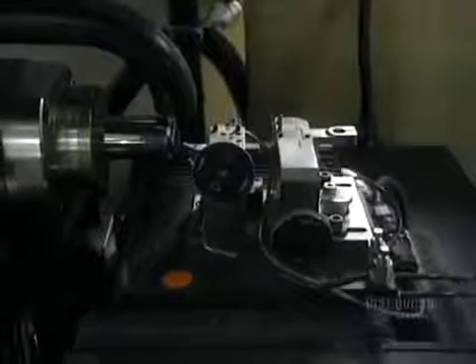They begin by shaping the inner curvature of the lens. This digital lathe, rotating at 6,000 revolutions per minute, is equipped with an industrial diamond. It shapes the inner surface — the part that touches the cornea — and it must be free from any abrasion and imperfection, and is polished with a super fine abrasive paste.